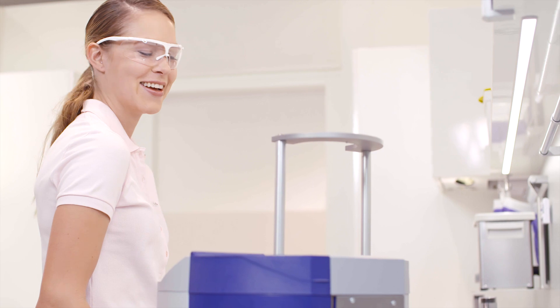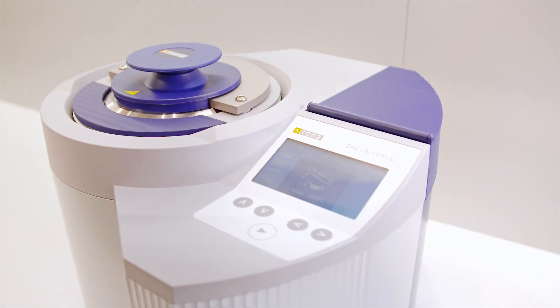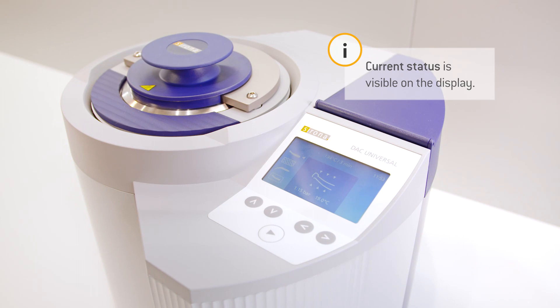Now you have time to take care of other tasks, since the DAC Universal performs the reprocessing cycle completely automatically.